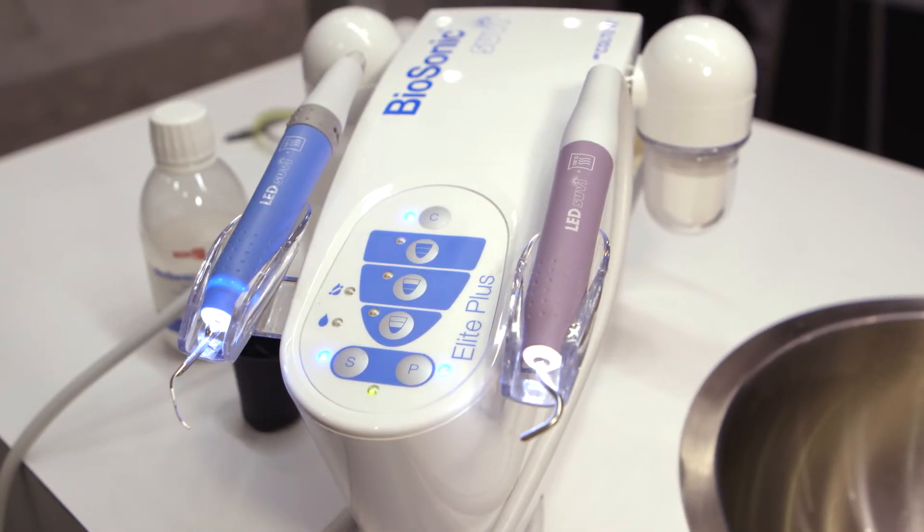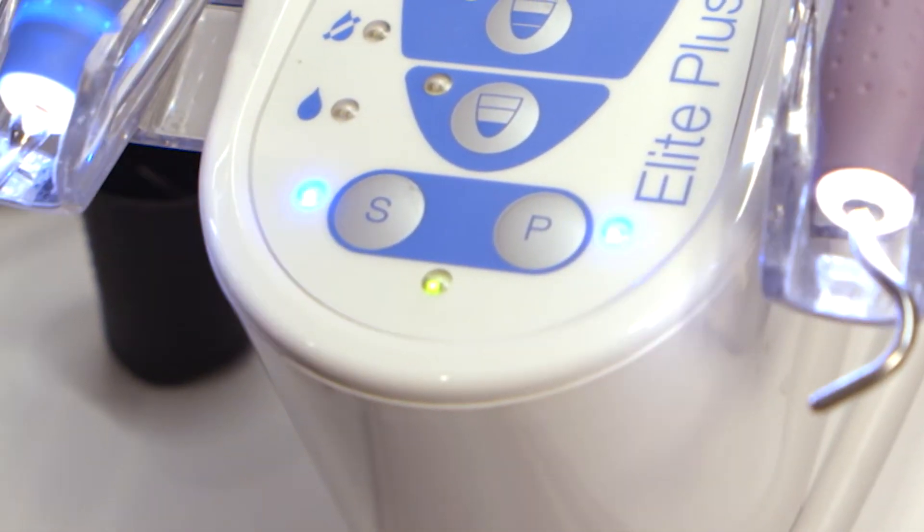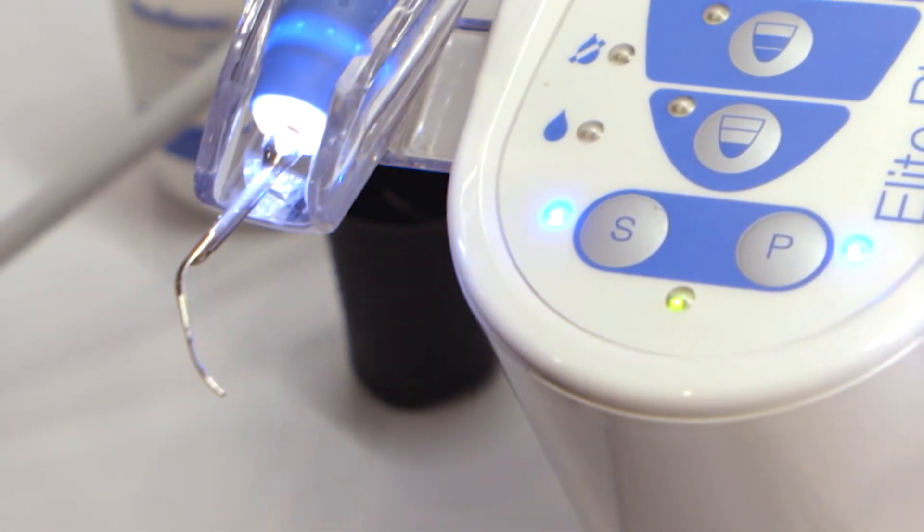The clean feature where you just press a button and it cleans out the whole tubing. The light on the working end is the most outstanding feature of this product. That light really allows you to see what you're doing and shows you where you've been.